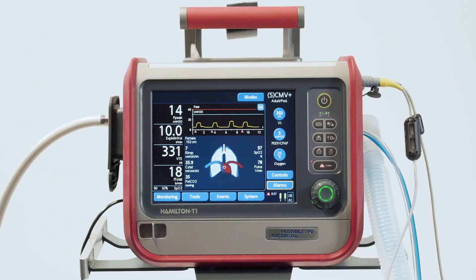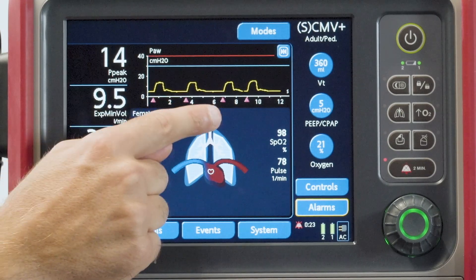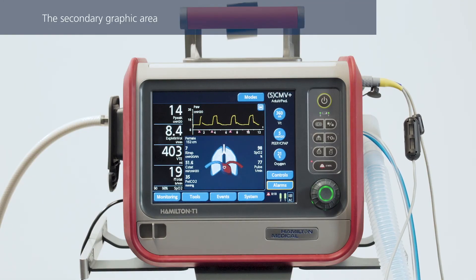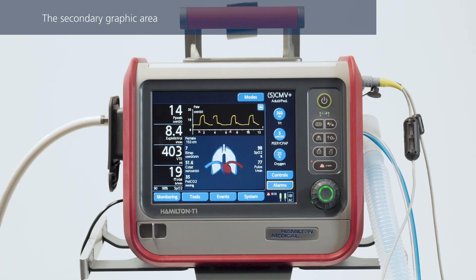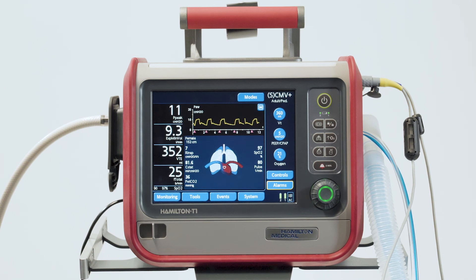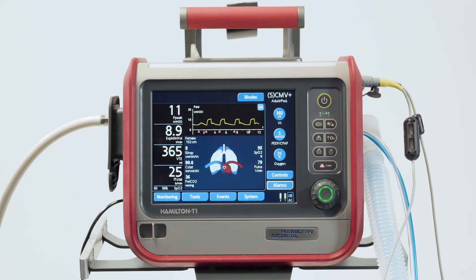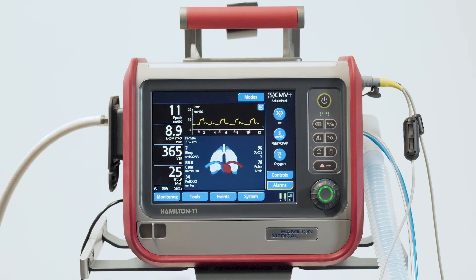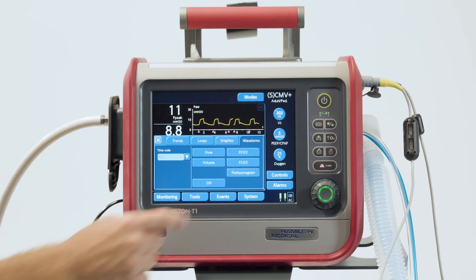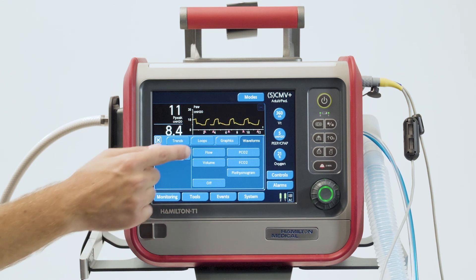The pink triangles below the pressure-time waveform tell you that the breath is patient-triggered. You can also choose to display a second waveform, like volume or flow, plotted against time. If the CO2 sensor is enabled, you can even display two additional waveforms. To display an additional waveform, just touch anywhere in the graphic area, then touch the waveforms tab, and choose the parameter you want to plot against time.